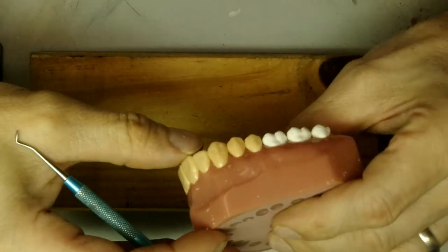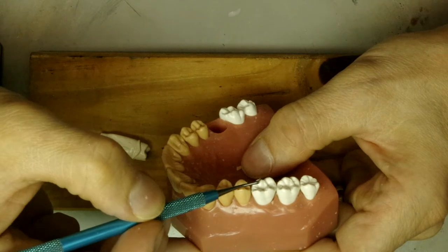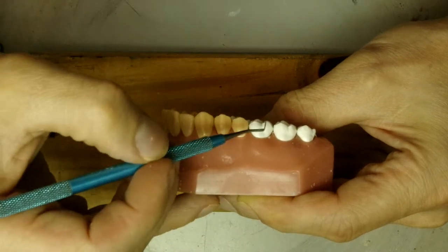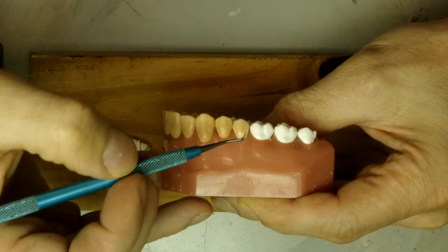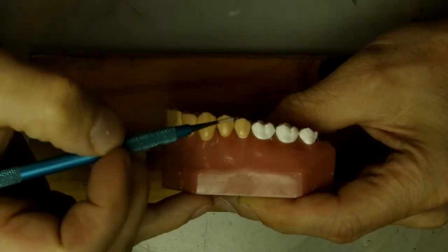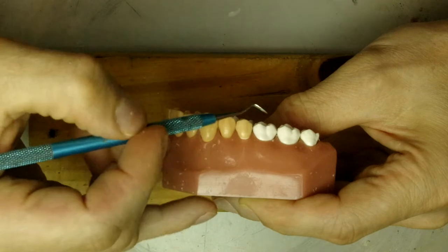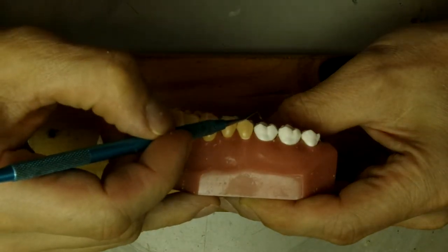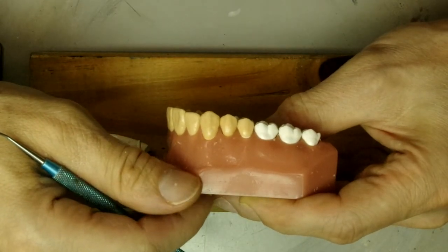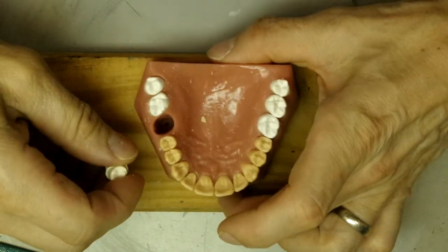With that said, the lingual cusps on the uppers are generally a little bit higher than the buccal cusps. On the lowers it's the opposite. So keep that in mind as you're waxing the lingual cusps. It could be sometimes at the same level, but most of the time it's a little higher, unless it's ground down because you're an older person or something. So let's go and start waxing.